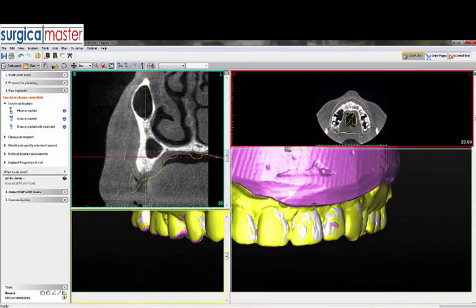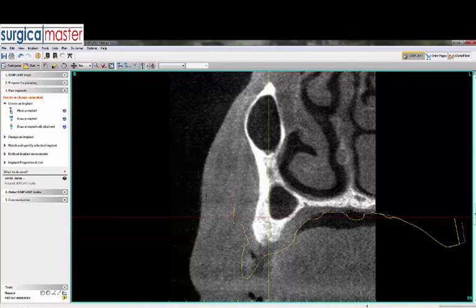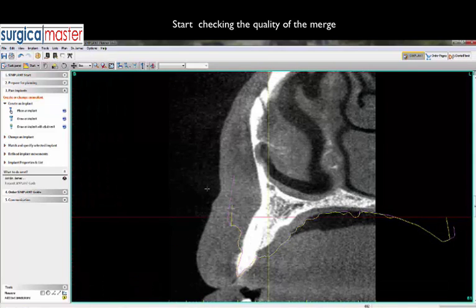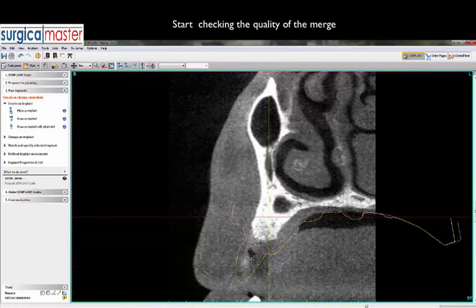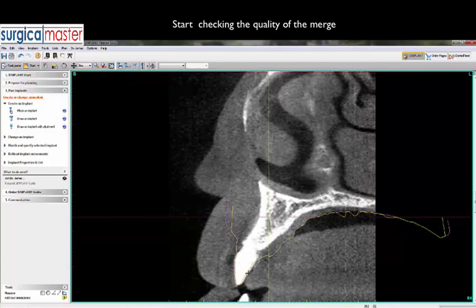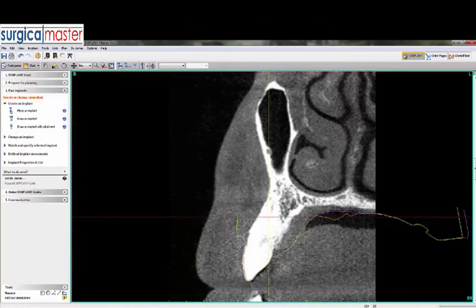Looking at the initial screen, on the upper left-hand side we have the cross-section. The first thing I do is check the quality of the merge by looking at the different slices along the arch, making sure all these lines are roughly in the same position. That tells me the merging of the wax-up and the edentulous area plus the CT scan is very accurate. It follows the outlines of the teeth and the hard palate — so I know this is a very good merge.